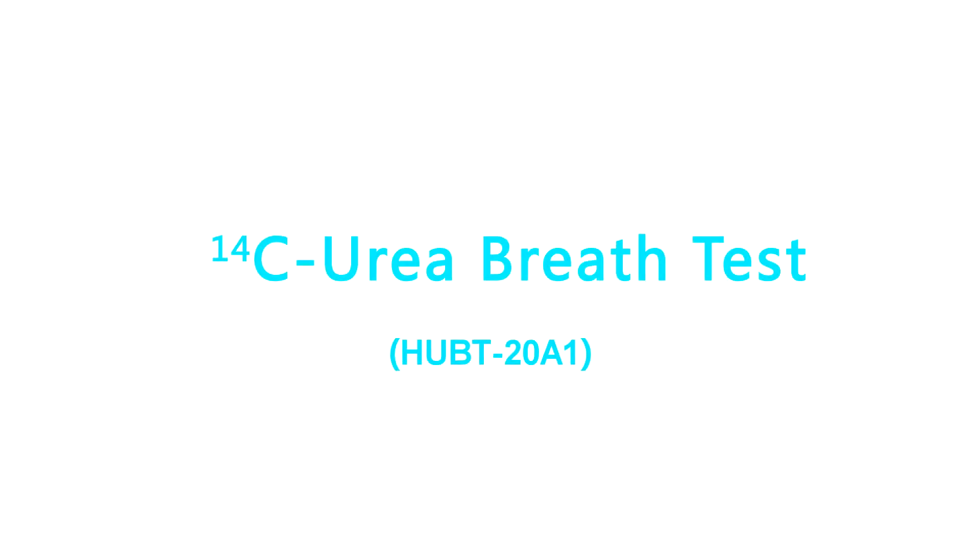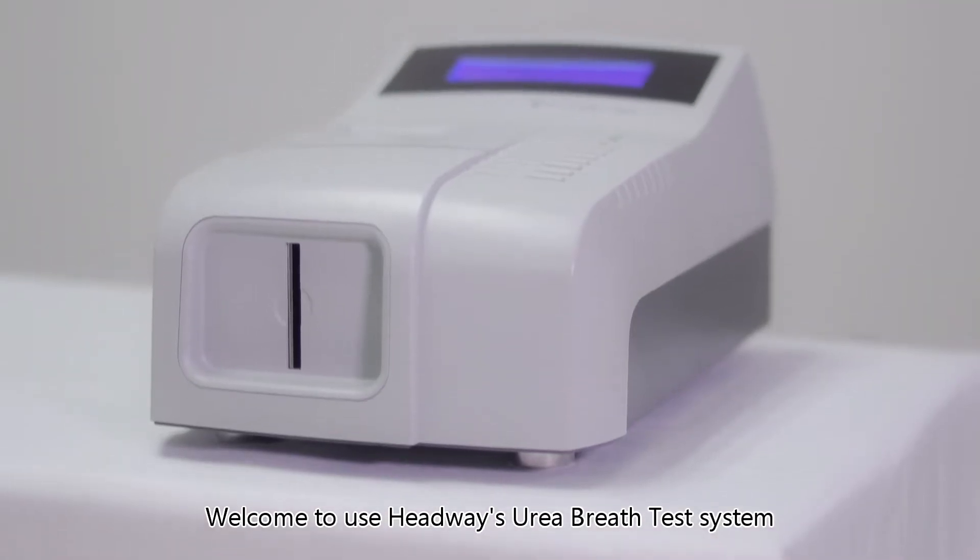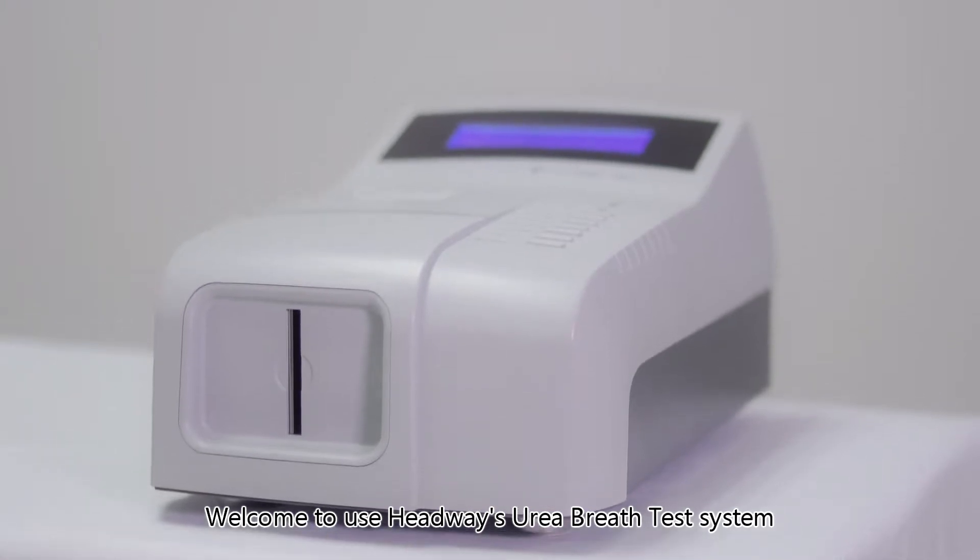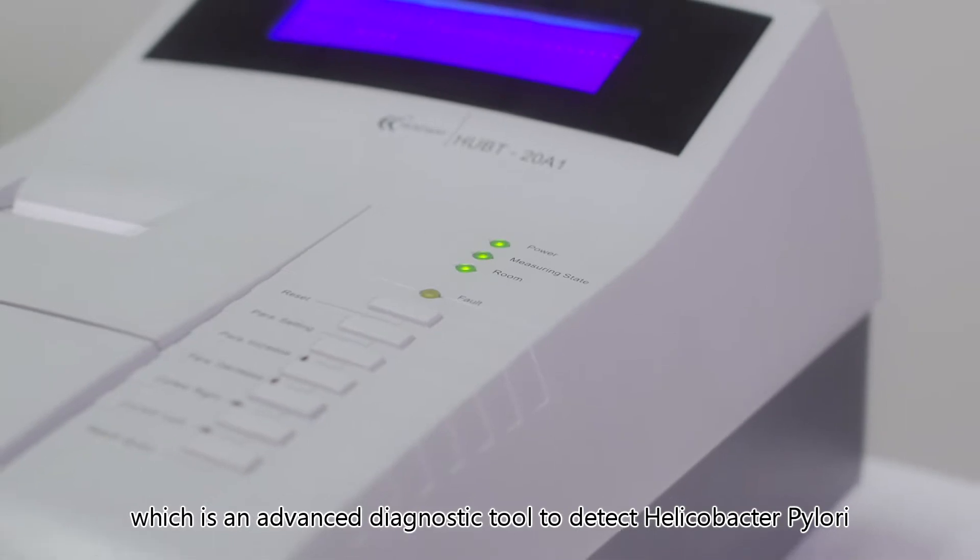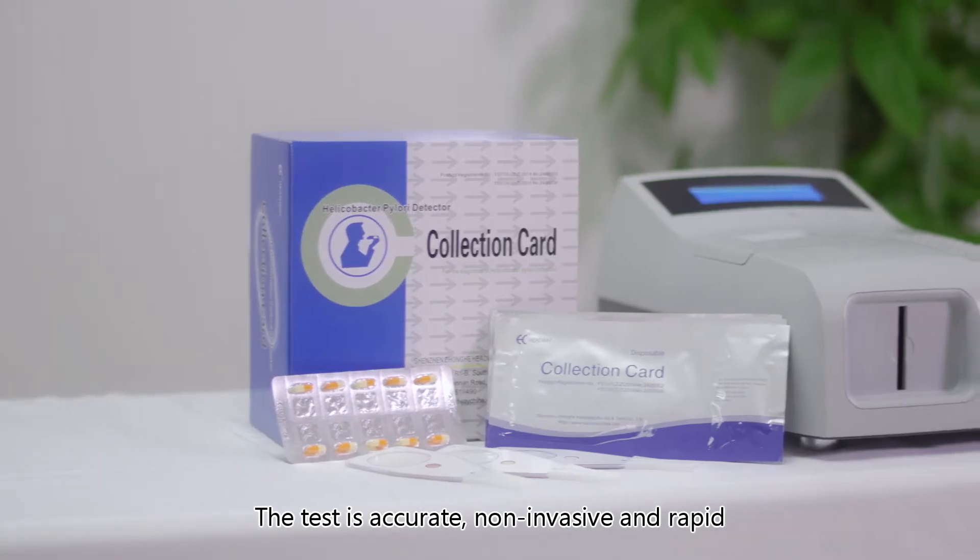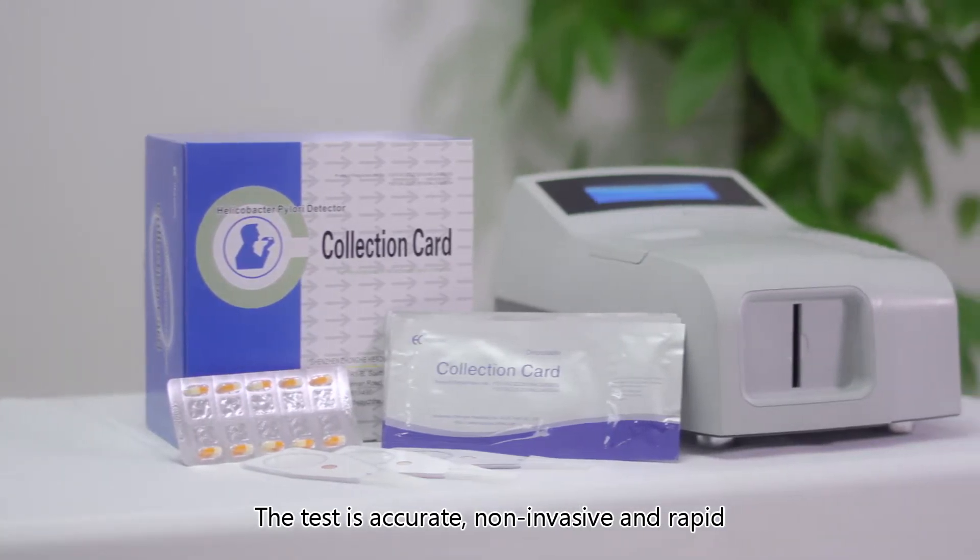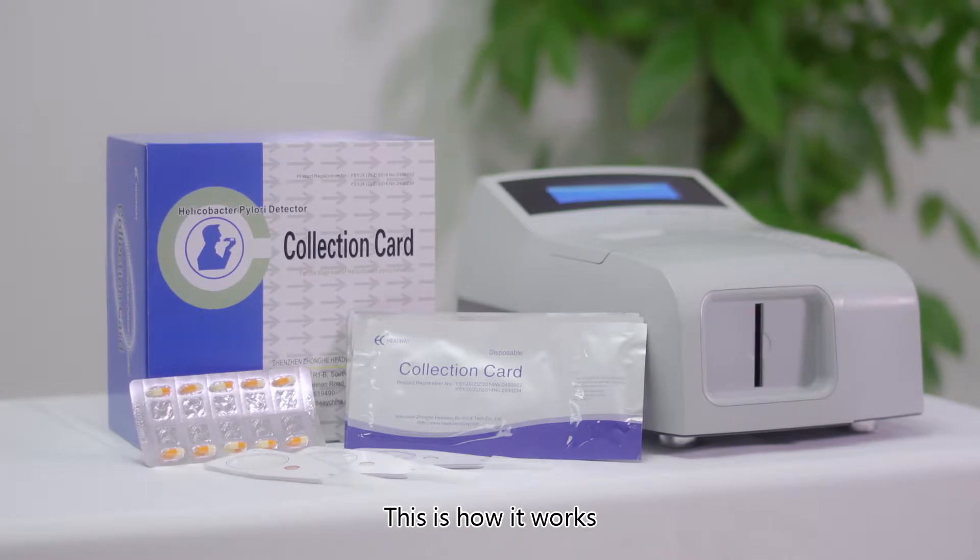Welcome to using Headway's Urea Breath Test System HUBT-20A1, a Carbon-14 urea breath test. This is an advanced diagnostic tool to detect Helicobacter pylori. The test is accurate, non-invasive, and rapid. This is how it works.